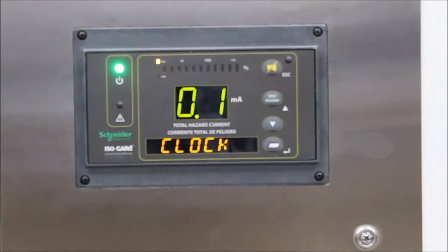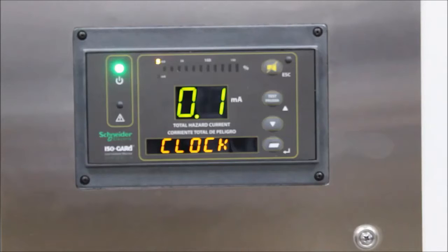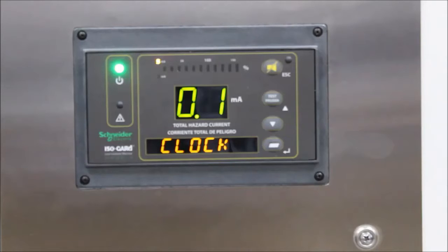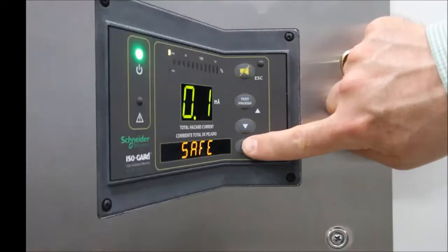Today I'm going to show you how to set the date and time on the line isolation monitor, the Schneider Electric IG6.